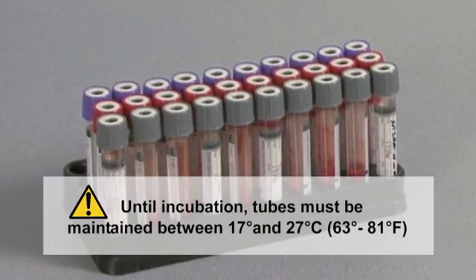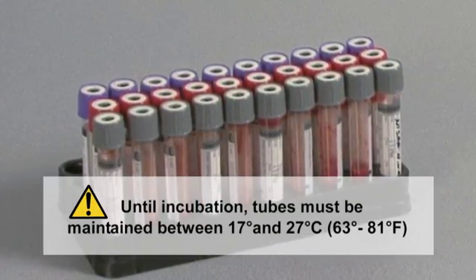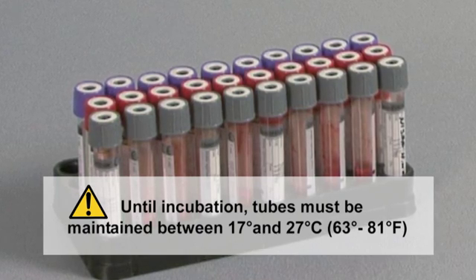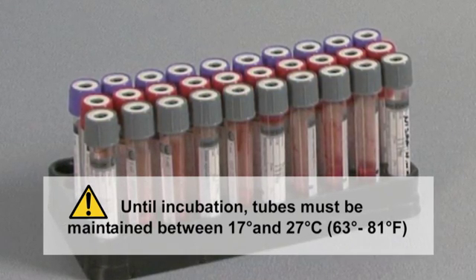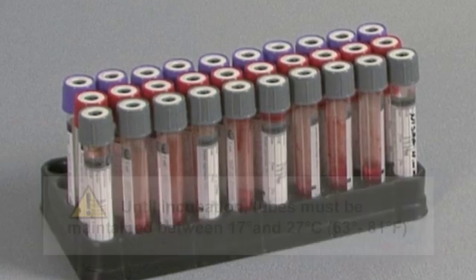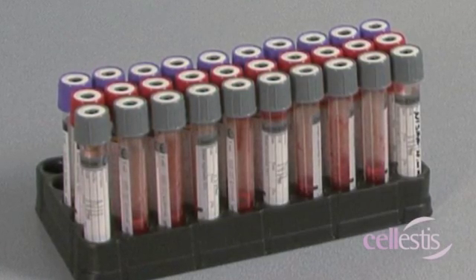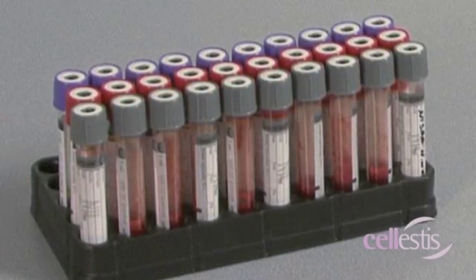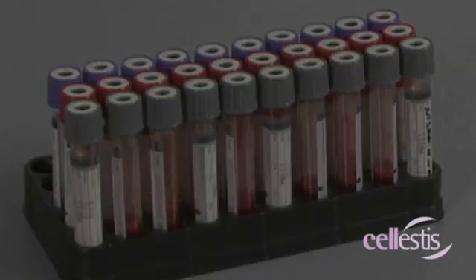Until the incubation stage, tubes must be maintained within 17 to 27 degrees Celsius or 63 to 81 degrees Fahrenheit. Use or storage of filled tubes at temperatures outside this range may cause erroneous results.